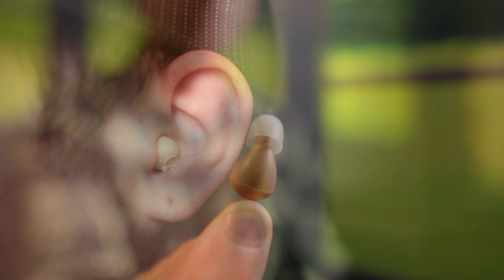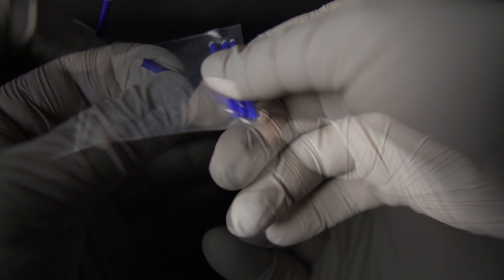Some key features I like and that the company advertises: the super small discreet size — you could barely see these when they're in your ears, which is great for folks that don't want people to know they're wearing hearing aids. Both come with replaceable wax filters, which is a near must-have for any hearing aid. The Atom Pro 2 also has a really cool built-in UV light that sterilizes the hearing aids every time you put them back in the case. They are rechargeable, but at this price point they won't have all the bells and whistles, like an app, and they're not programmable to your hearing loss — but that doesn't make them a bad hearing aid.